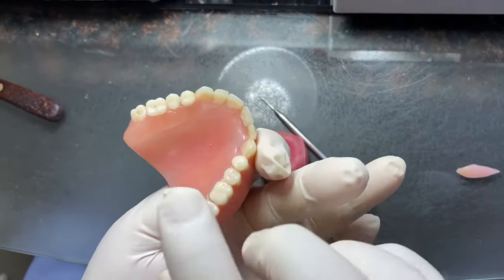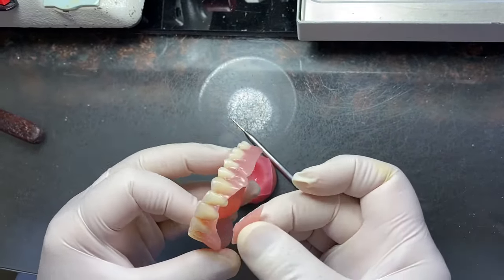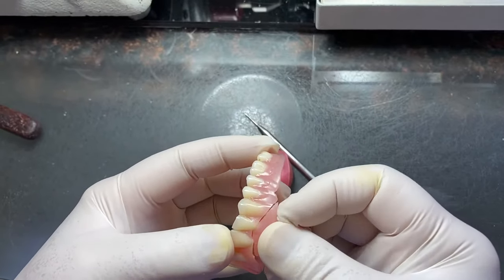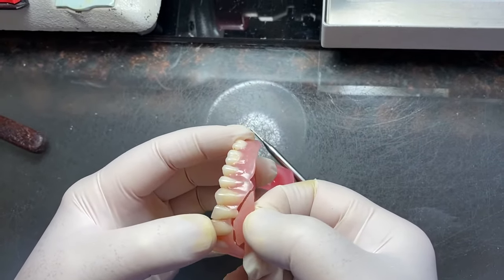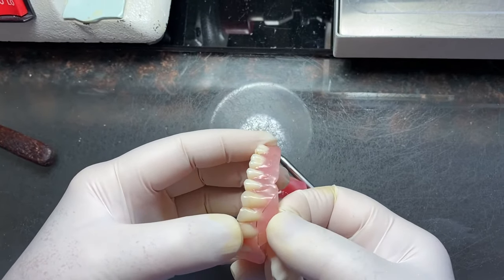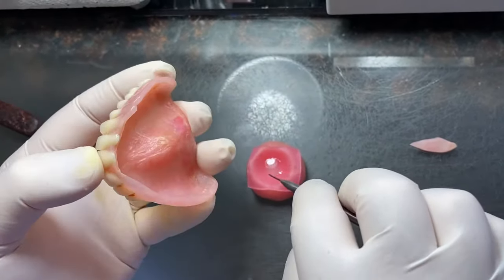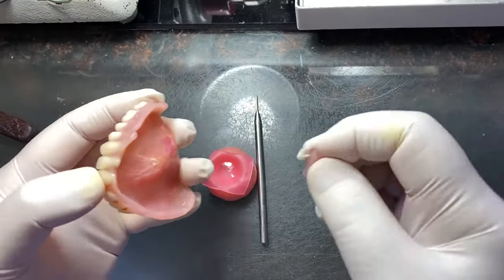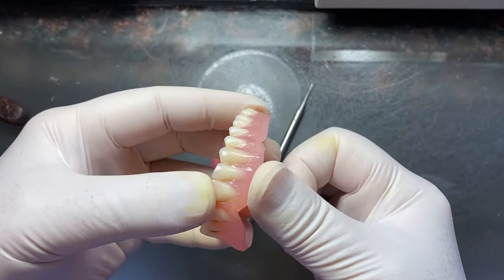After that, hold it — it's holding in place. Now another piece. Practice it first. Don't do it without practice. It's like this. Practice two, three times — four times. See? No glue first, you have to practice it. Now you learn how to do it. Then you put the glue. You already practiced it, so hold it for a few seconds or minutes.